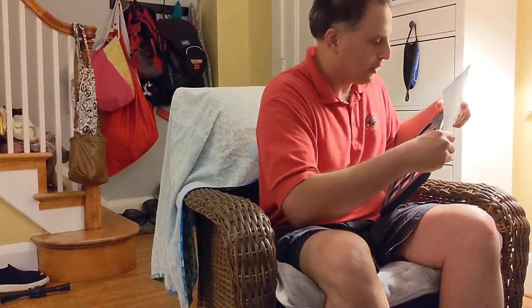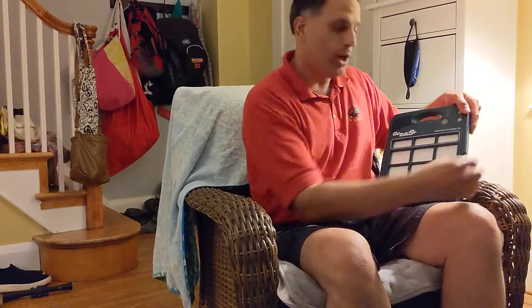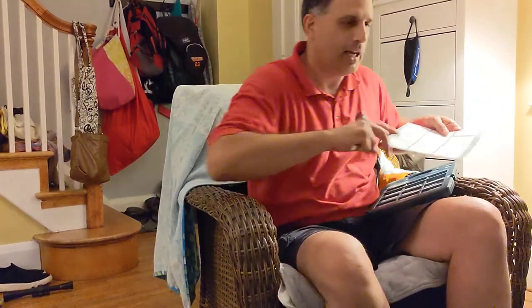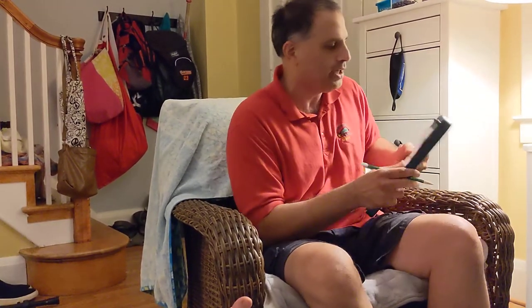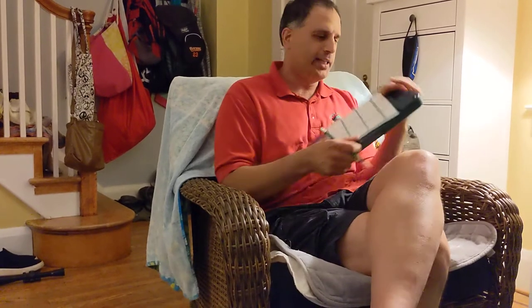So you can have new overlays that you can stick in there. On the overlay, you could write — I can use my computer and type, create a new document in Microsoft Word or something, and create a new overlay with pictures in it. But if you don't have access to a computer and you just want to do it yourself, you can just write on a blank overlay like this.